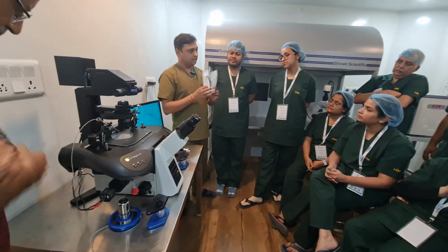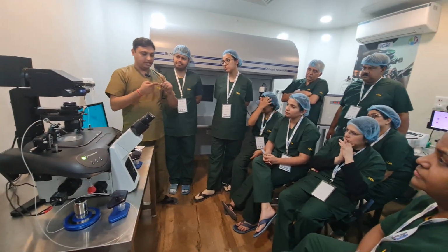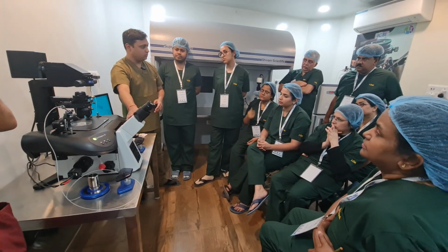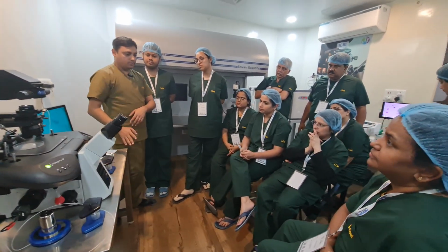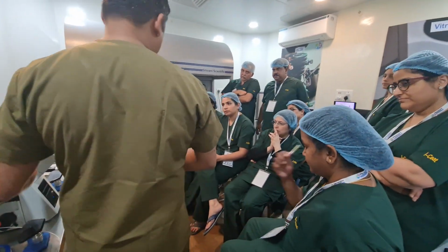Basics about needles. Now I am telling you about the microscope, right? So two parts: one is the microscope, another is the micromanipulator. First I will tell you about the microscope, then the micromanipulator. So for the microscope, if it is Nikon or Olympus, the parts will be the same.